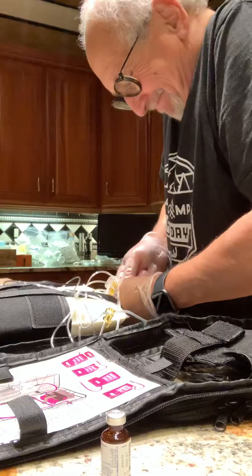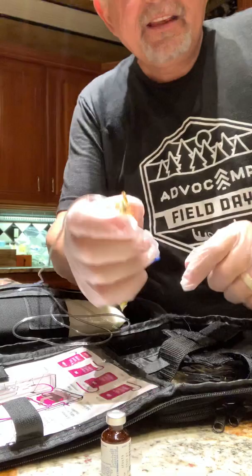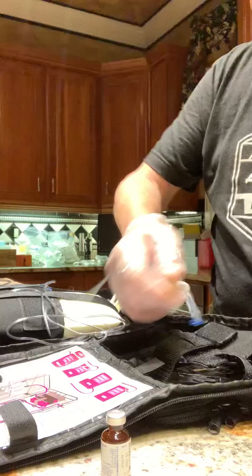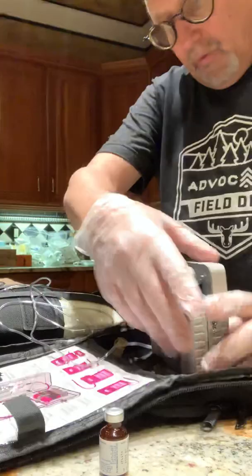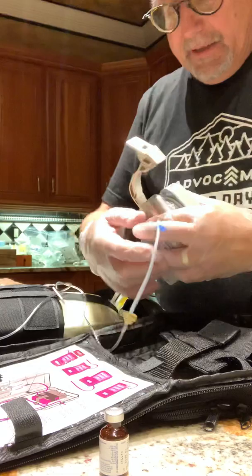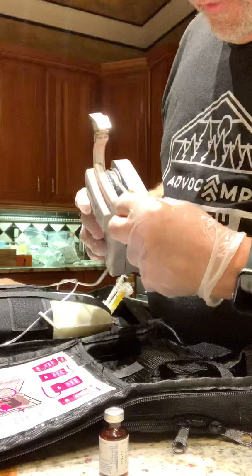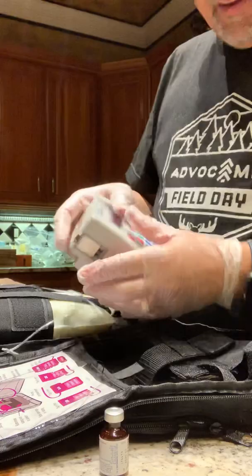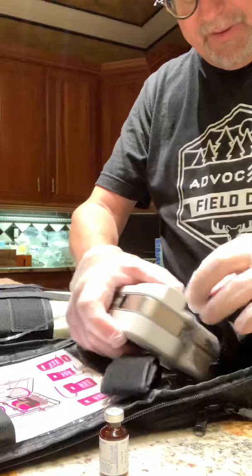It takes a little effort to get that connected. The manufacturer puts a little round yellow tab on the back of the yellow part of the feeding tube. Inside the unit there are two points where two different tabs need to be inserted: the first is a little blue peg, which goes in the side, and the second is yellow, which goes to the far end. Then there is a simple clamping process to make sure everything is engaged properly, and then the pump gets inserted into its little pocket, also held in with Velcro.